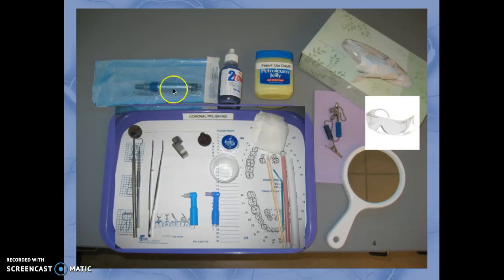Next we have the straight handpiece, which will be used with a disposable profi angle. We have the rubber cup profi angle and the bristle brush or brush profi angle. The straight handpiece will be cleaned of debris, lubricated, and sterilized for each patient. The profi angles are disposable, so we would just discard them in the trash.